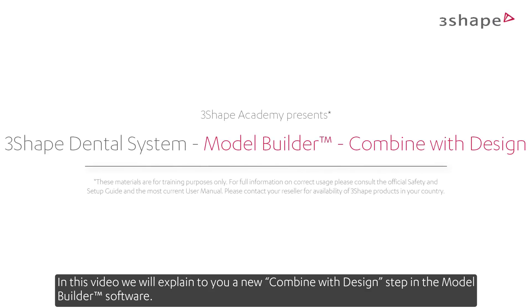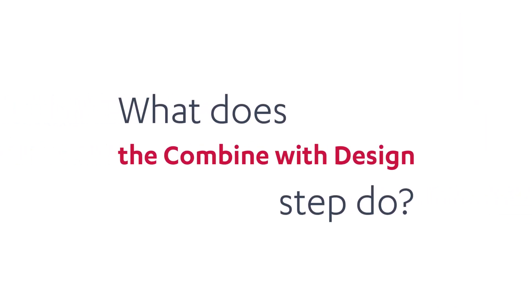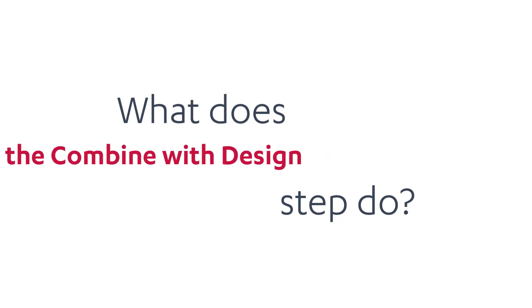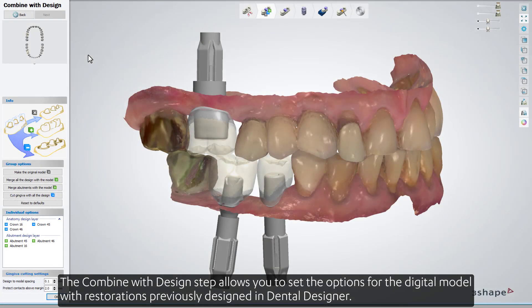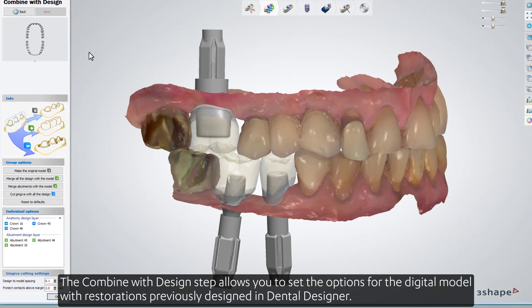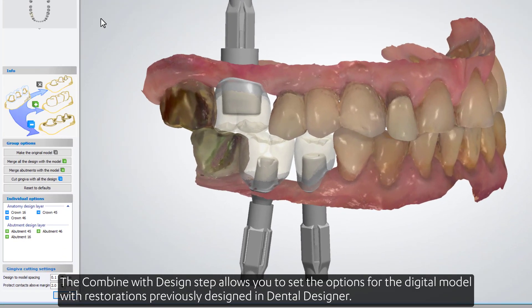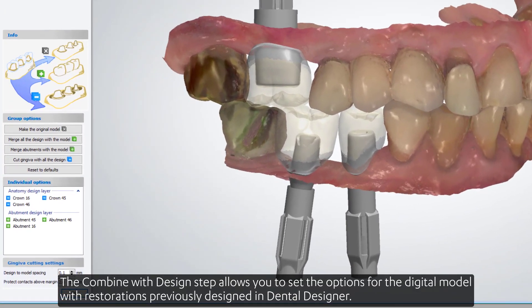In this video, we'll explain a new combine with design step in the Model Builder software. The combine with design step allows you to set the options for the digital model with restorations previously designed in Dental Designer.